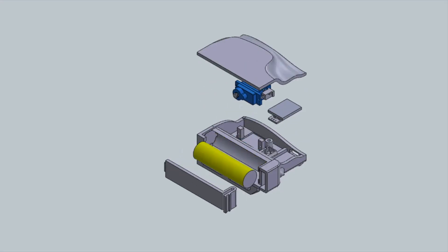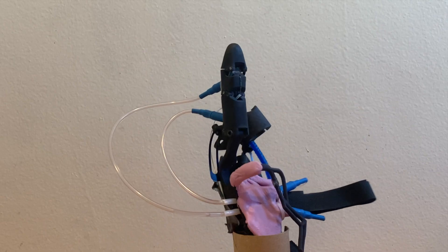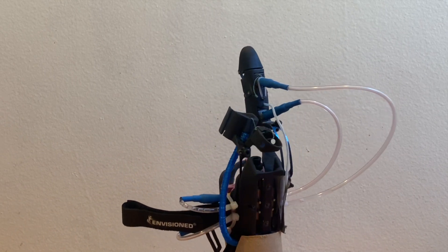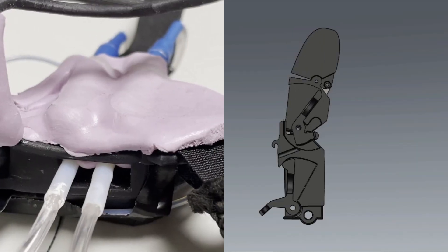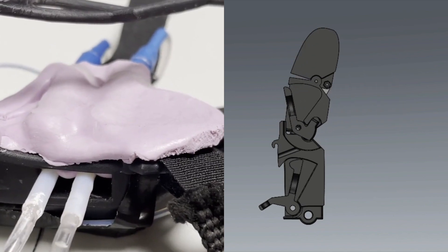All of the electrical components are stored in an external wrist module, which contains a rechargeable and removable battery. The development of a general interface utilized the hand's natural geometry and a patent-pending variable compression harness that adjusts its tightness according to the loads applied during use. Using a bladder system, our harness dynamically changes compression when smaller bladders in the index finger are compressed.